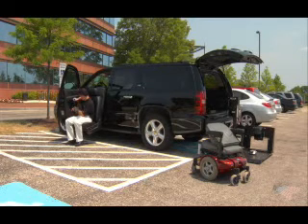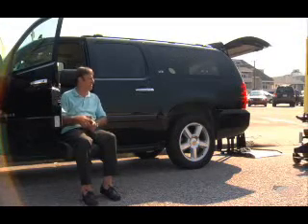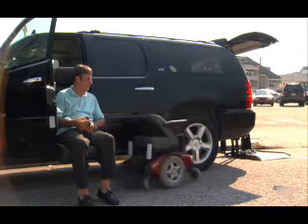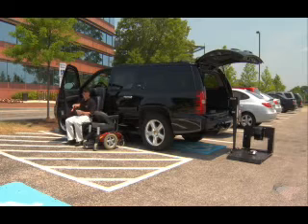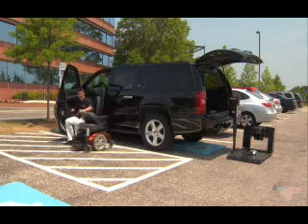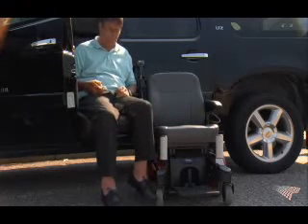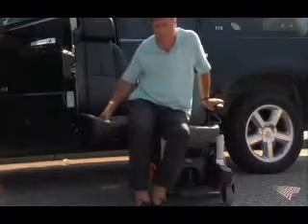Now that it's in my line of sight, I enable this joystick and I take control of it, and now I have free reign over this chair to position it in the best spot to facilitate a seat-to-seat transfer. Now, once I'm here, I have all sorts of options. Okay, what I'm going to do is relinquish control of the chair with this joystick, and now I can move this around to help facilitate the transfer. I can exploit the shifting feature of the Freedom seat to get a little bit closer, and I perform my transfer.